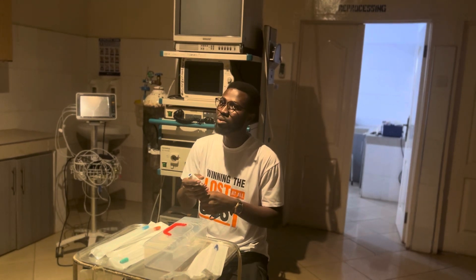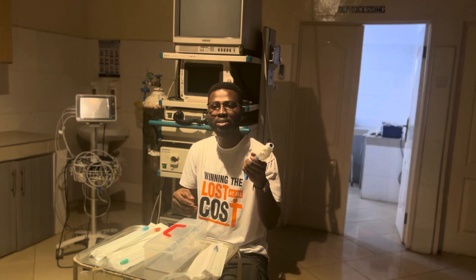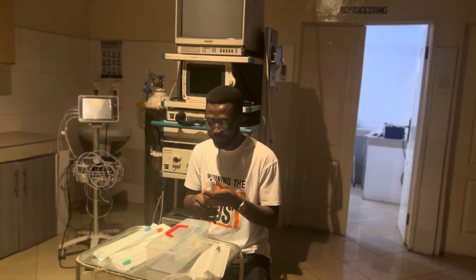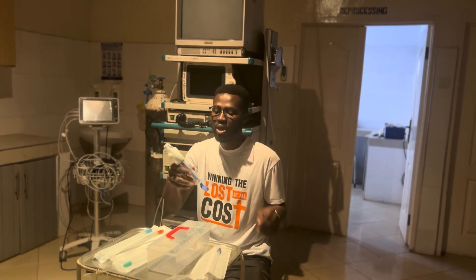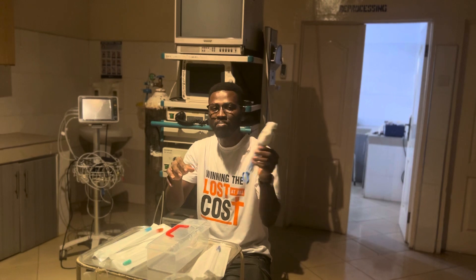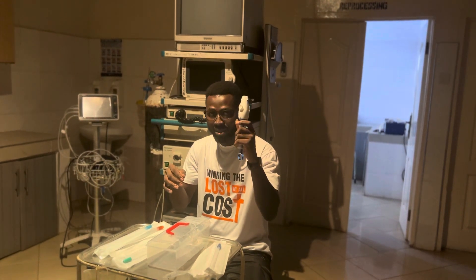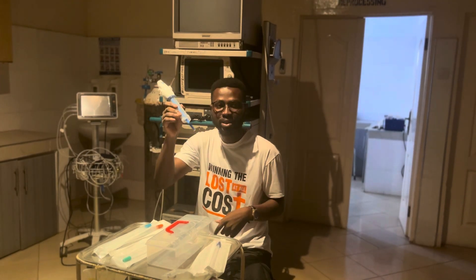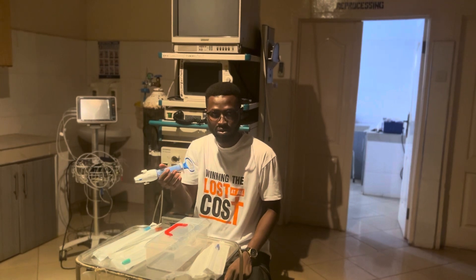They can also ask you the signs that indicate that the procedure is completed — all cases, you are very familiar with those questions. Or sometimes they can actually show you this and label the parts, then ask you to identify the labeled parts.